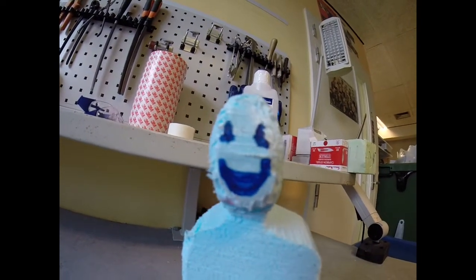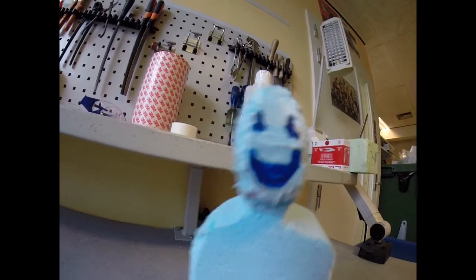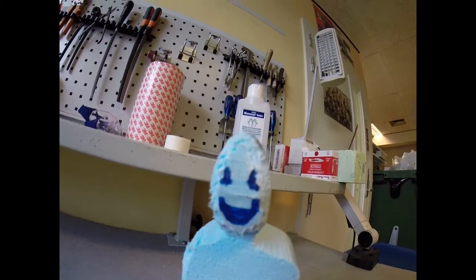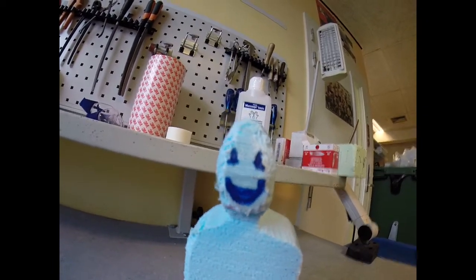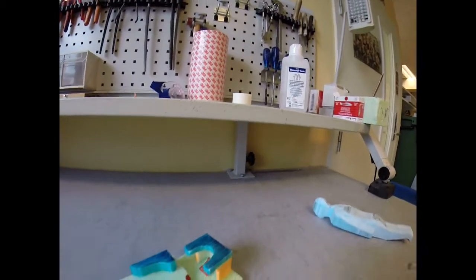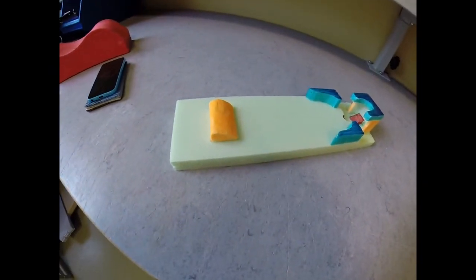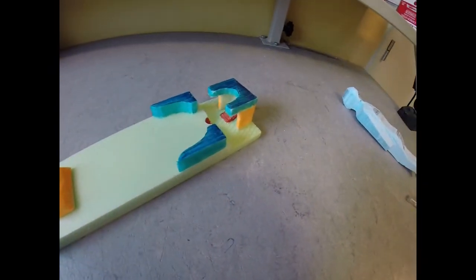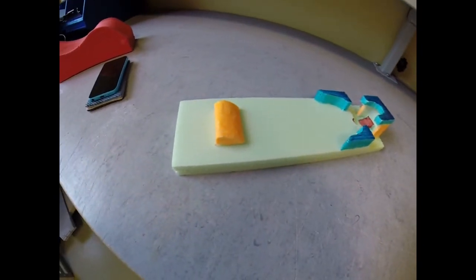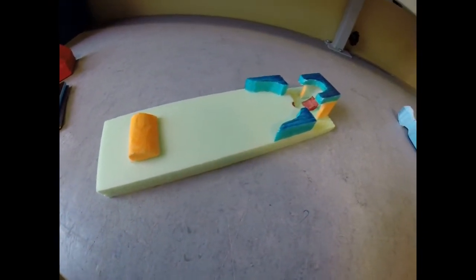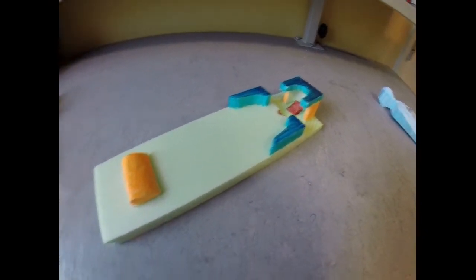Hello everybody, this is Andy from Rotterdam. Today we're going to talk about craniospinal treatment a la parisienne. This is it - I made a scale model of what I saw in the Gustave Roussy hospital in Paris.